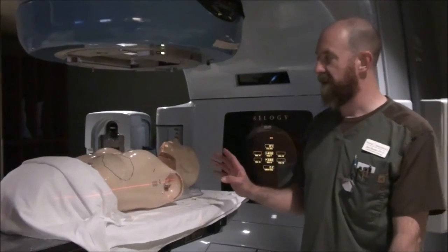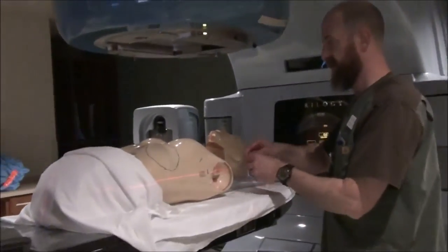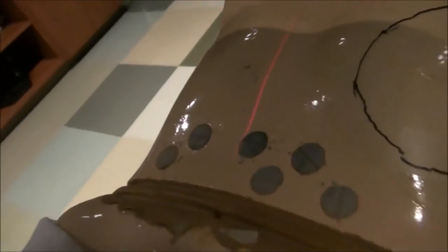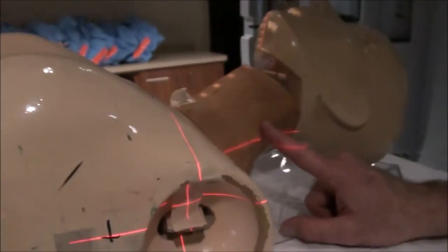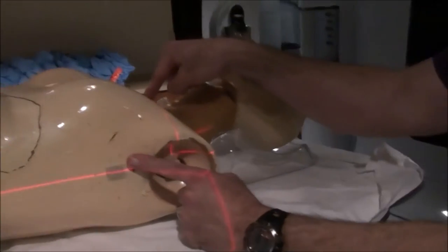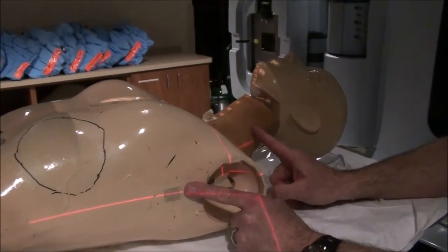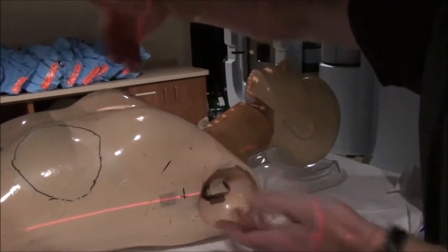The big difference is that for a mantle we're going to have two additional dose points. You're going to have your CR just like before, lower mediastinal, and upper mediastinal — which in this case is going to be more of a neck dose point. Then supraclavicular, cervical, and axillary. So two additionals: CR, lower mediastinal, upper mediastinal, supraclav, cervical, and axillary. We want to know the dose at the cervical and axillary points as well, since we're trying to treat those nodes and they're way far away from the CR.